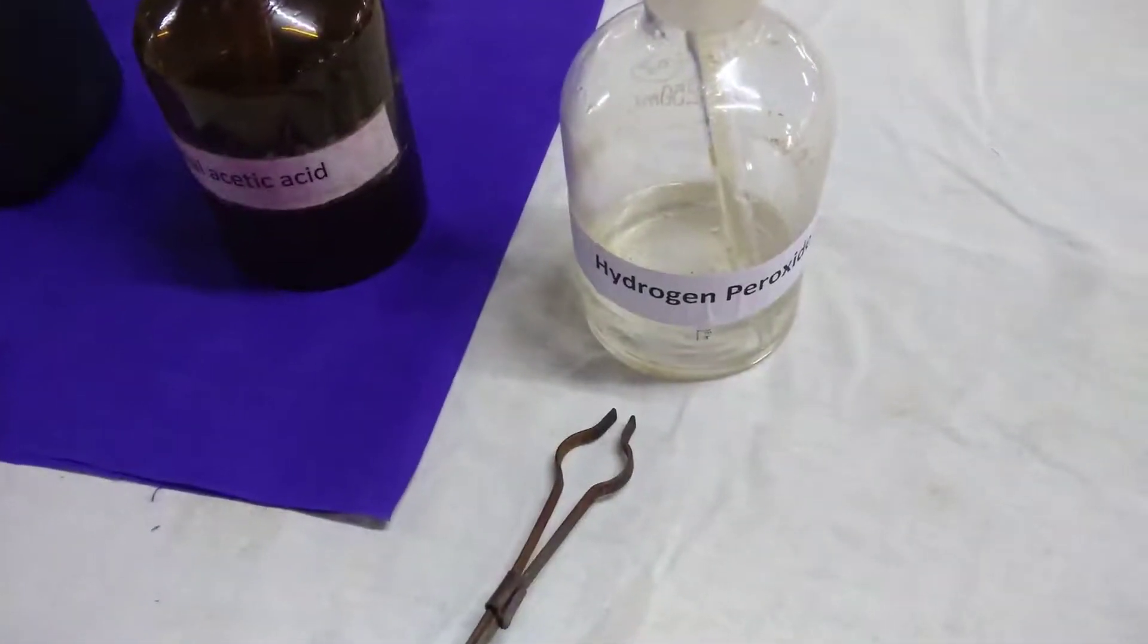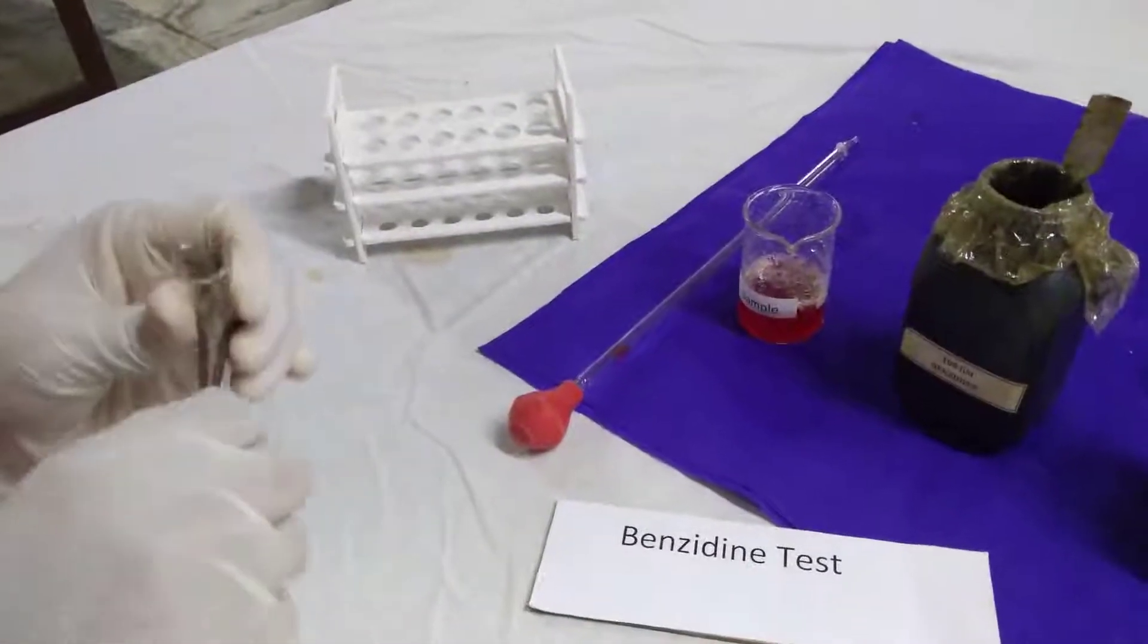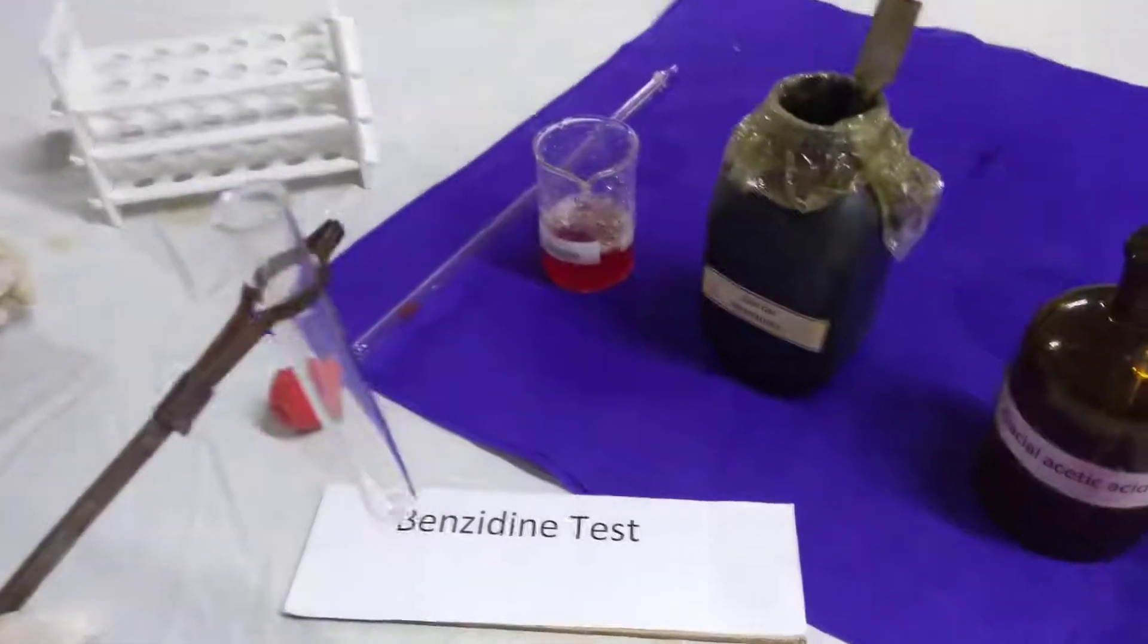and hydrogen peroxide. Take a test tube in a holder. Add a pinch of benzidine powder.